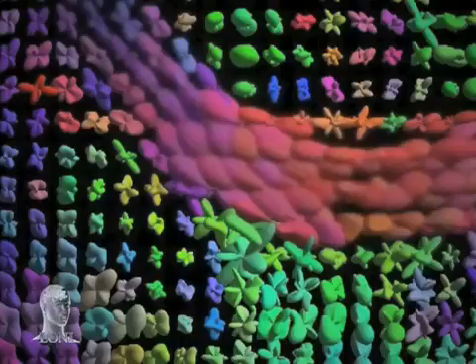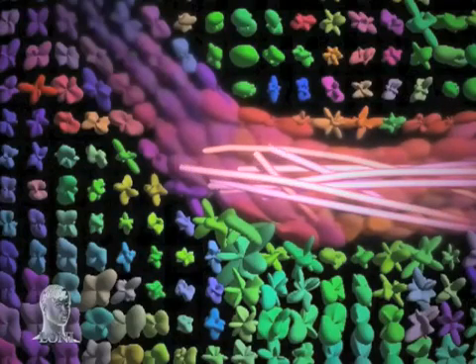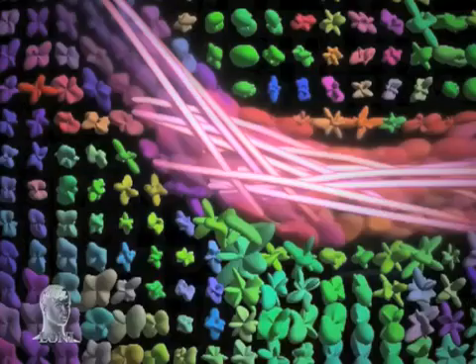This simple step-by-step process is repeated throughout the millions of voxels in one brain scan. But as the tracks are built, they are not restricted to a 2D plane. They can grow in any direction.